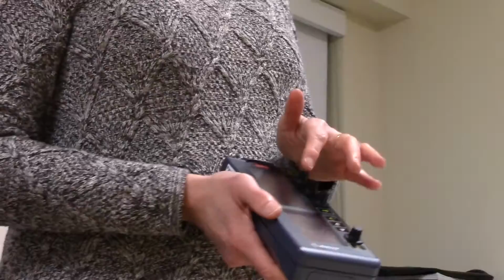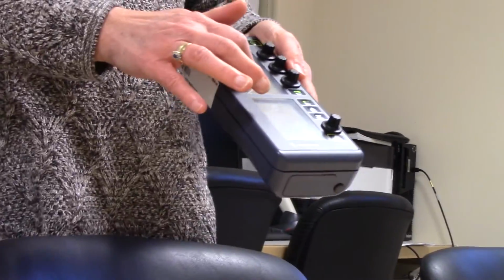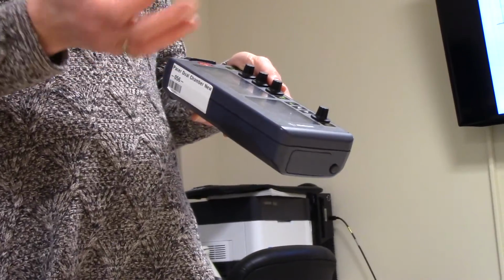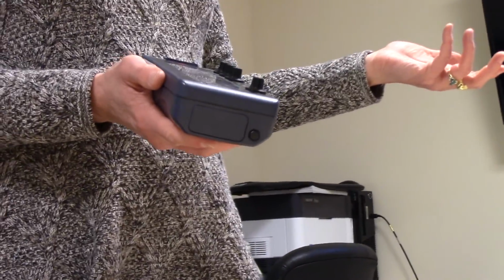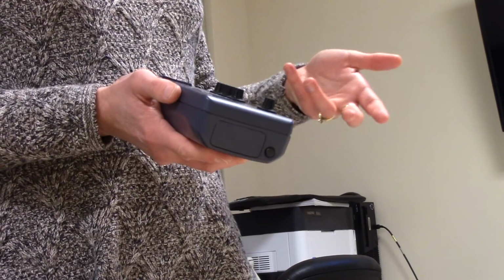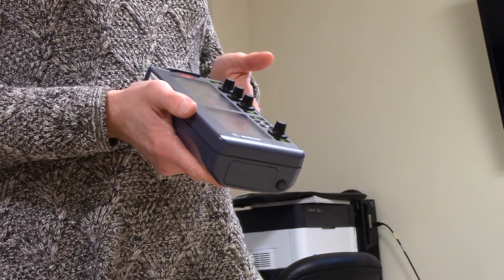You will get a low battery indicator. This battery symbol will start flashing red when the batteries get low. You probably have about 2 days worth of pacing, but we don't recommend waiting that long, because you might get this patient and you have no idea when that light started flashing. Did it start flashing 2 days ago, or did it start flashing today? We do recommend that new batteries are put in with every patient. I don't know if that happens here. When the light starts flashing, we recommend changing the batteries right away.